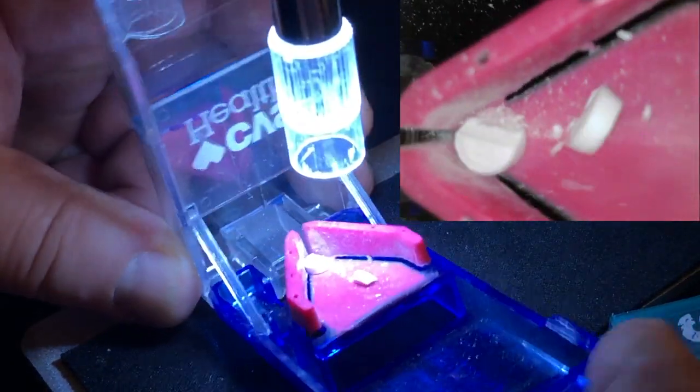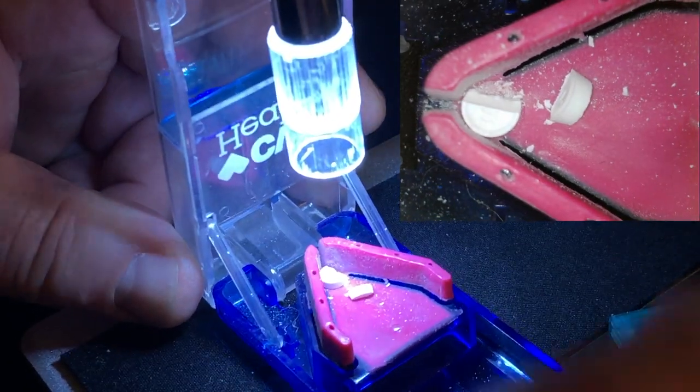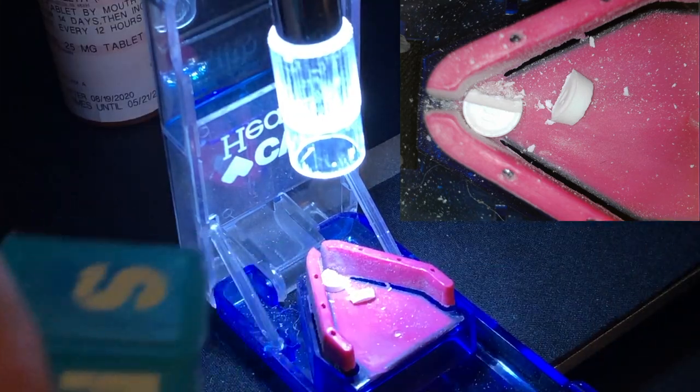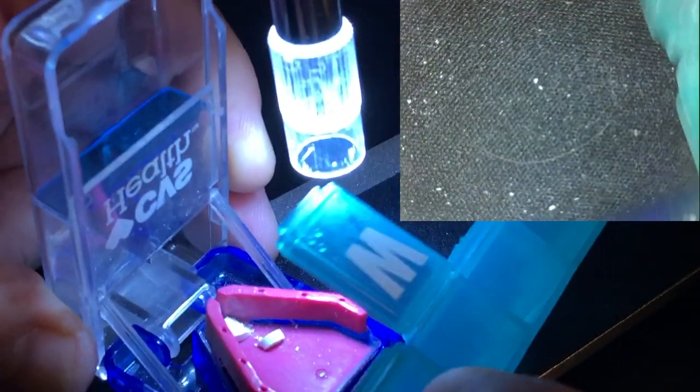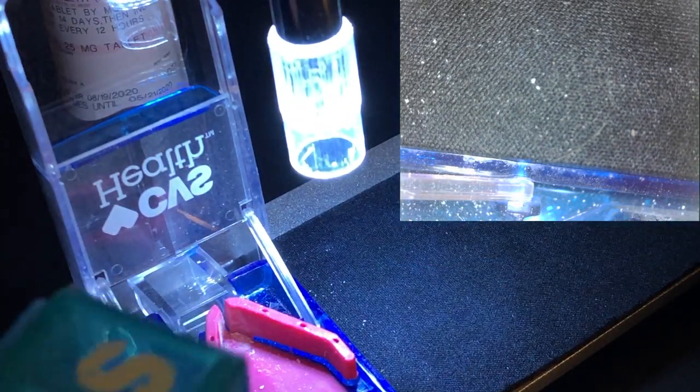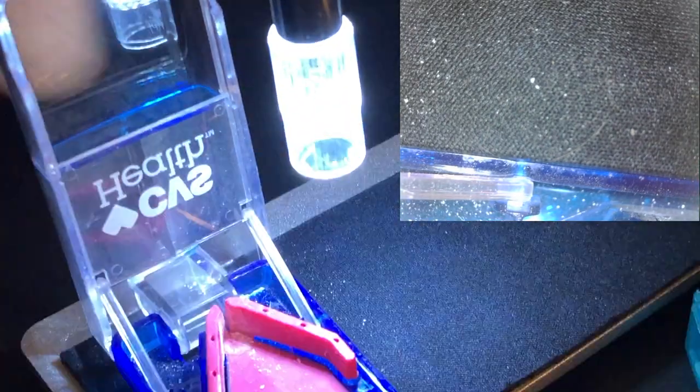See, this one did not work good, even though I cut in the right angle. That will be a bad day for the patient the Wednesday. Okay, but we don't want to waste this medicine.